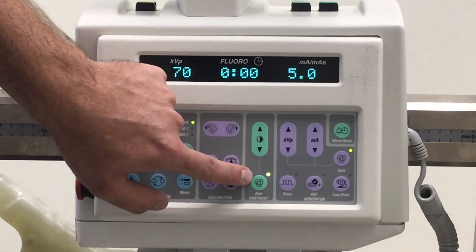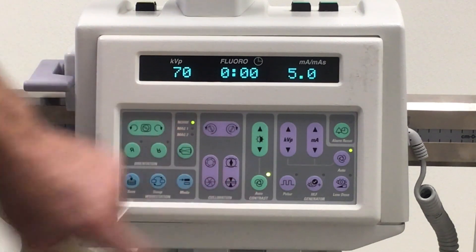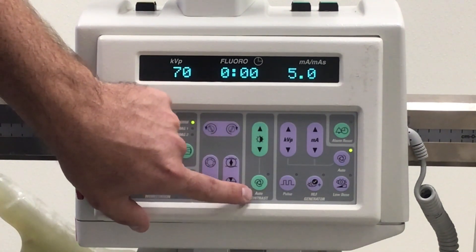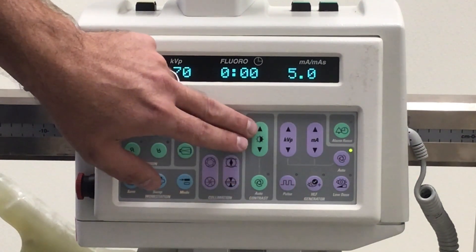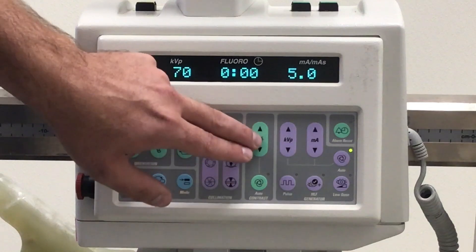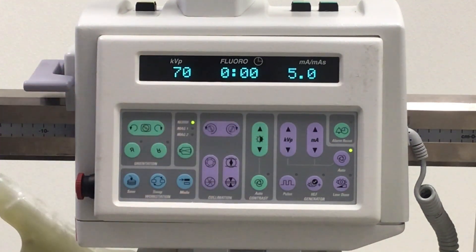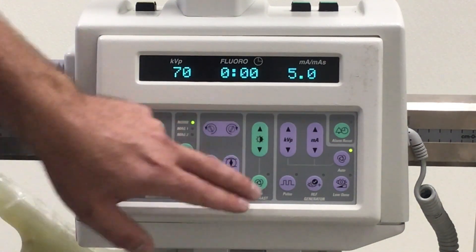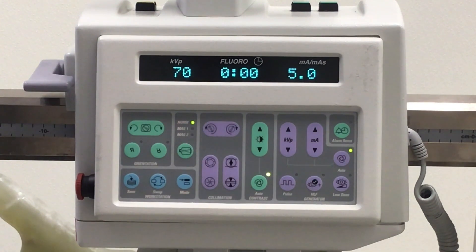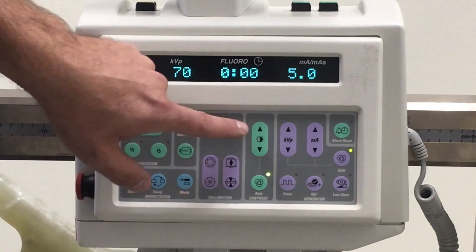This button is a two-in-one. Down here is your auto contrast button, which always defaults to on. When the auto contrast button is off, you can use this button to adjust your brightness and contrast for that specific case or the doctor's liking. That change will hold through the rest of the shots you take, and pressing that button again will turn auto contrast back on.